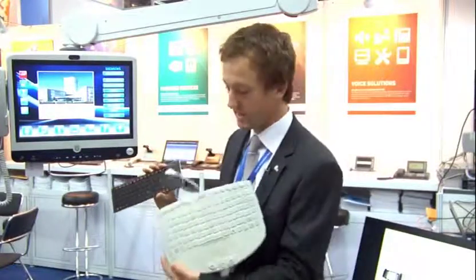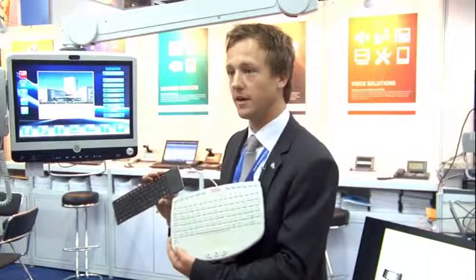For example, a terminal can be configured without a keyboard so the patient uses the on-screen keyboard, or with a wireless keyboard, or with a ruggedized keyboard that is waterproof and can be disinfected easily. Whatever the hospital needs for dedicated wards can be attached very easily, as it supports plug and play.